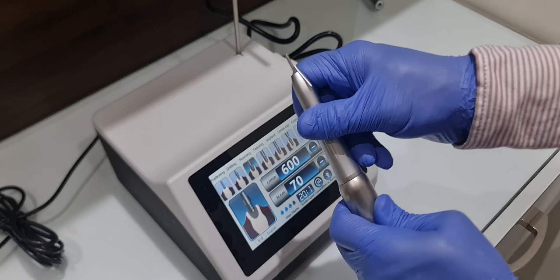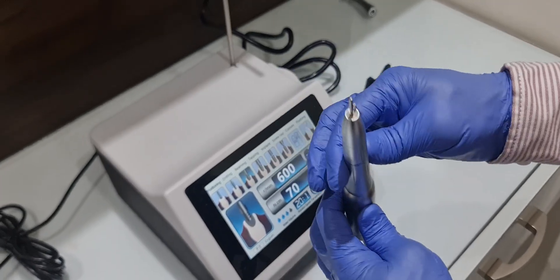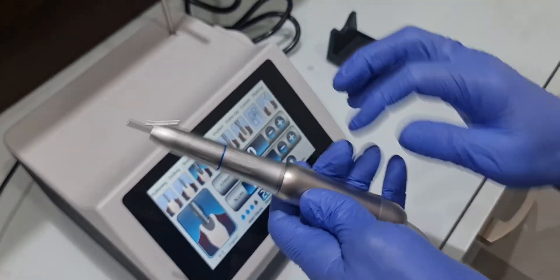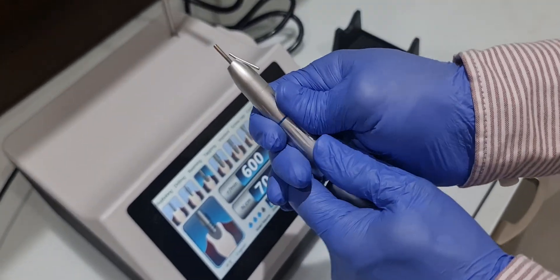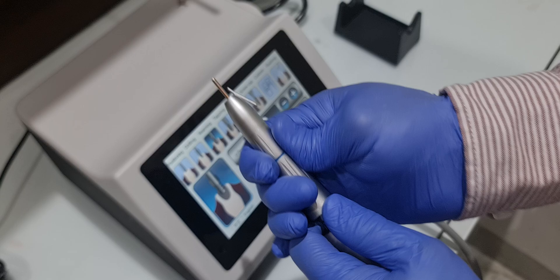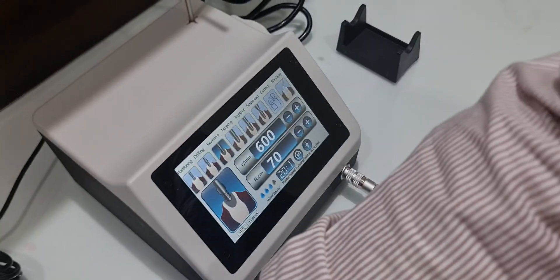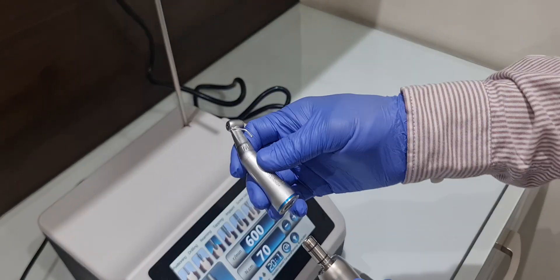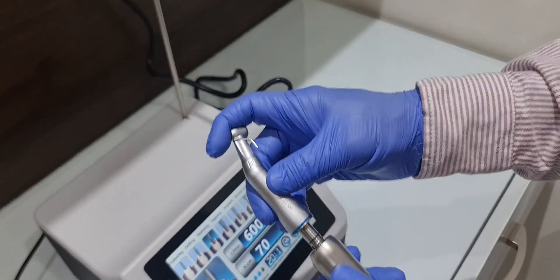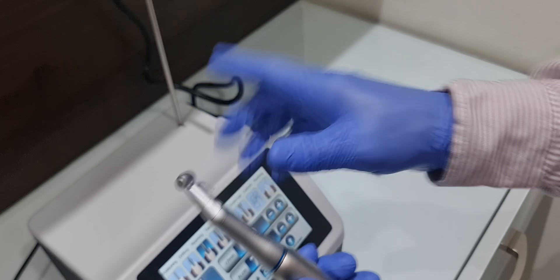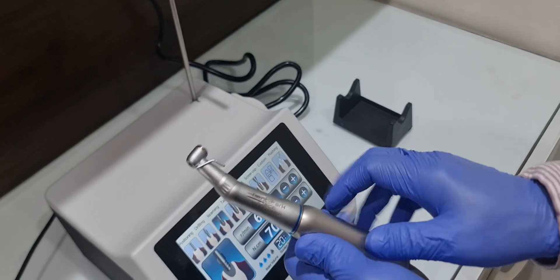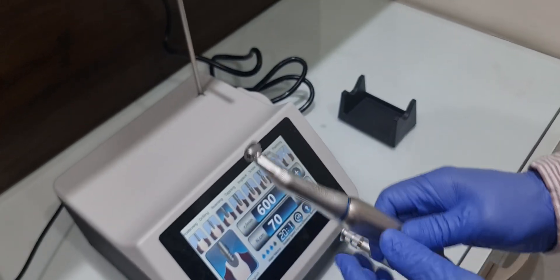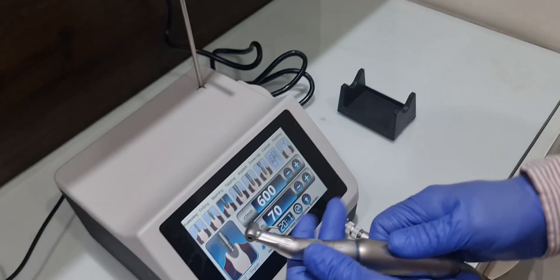And this is without fiber optic. This also can be used on the fiber optic motor. And this handpiece, 1:1 contra angle, also for basal implant, can also be used on this.